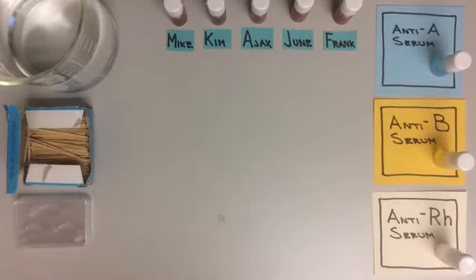In this video, we will apply some of the knowledge that we have gained about blood typing in our earlier theory-based video. Let's have a look at a practical application. Here we are first going to define one individual's blood type, and then we are going to try to find him a good donor match. Why don't we get started right away?